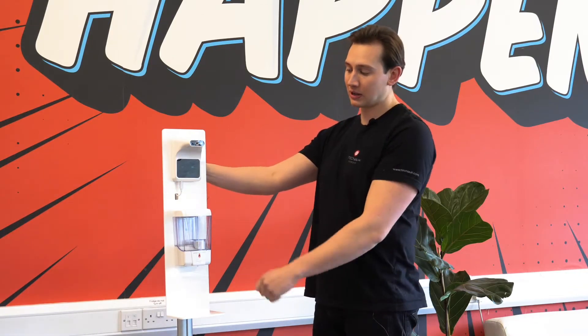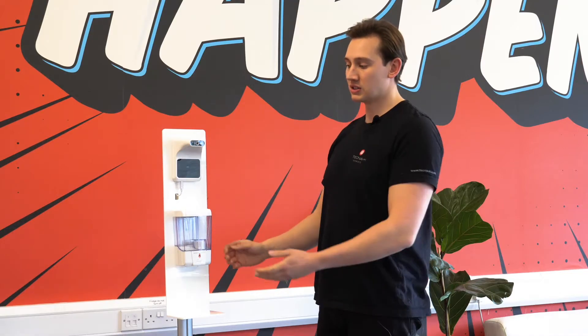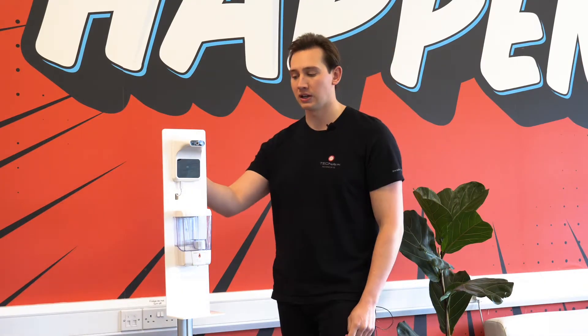What's great about this is that it's fully battery operated, which means it doesn't need to be plugged into the mains to work. This gives you six hours of battery life before you then need to plug it in.